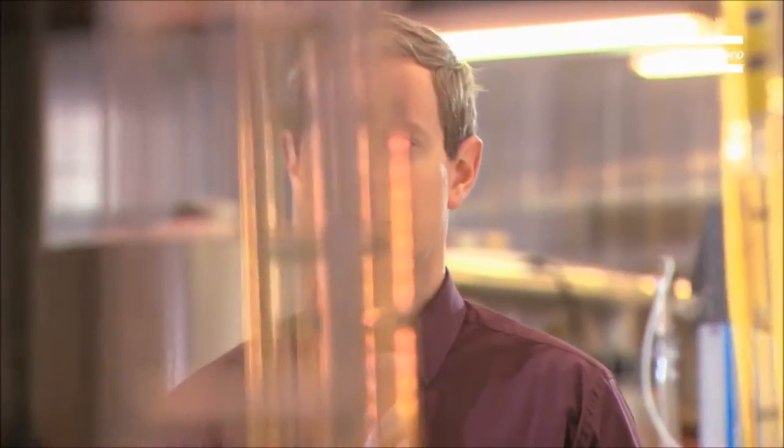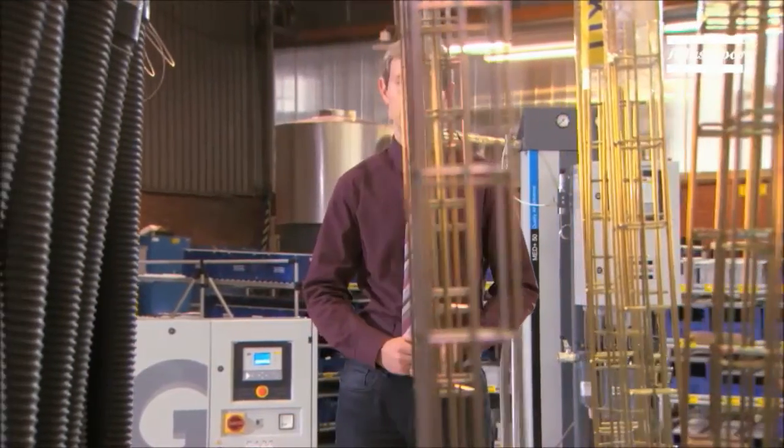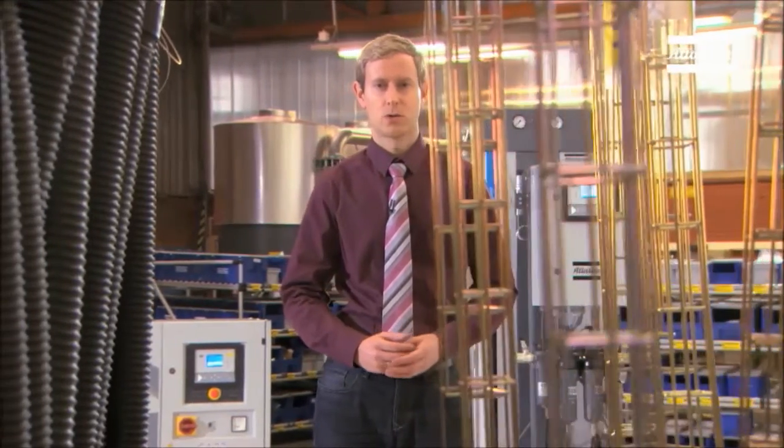We've made it clear by now — this medical air plant has a lot of clear advantages. First of all, Atlas Copco is a one-stop shop for medical solutions. We manufacture our own compressors and medical dryers, which makes us stand out from the competition. There are no more visits from different suppliers and no more discussions and collisions between them. With Atlas Copco, there's only one contact person.